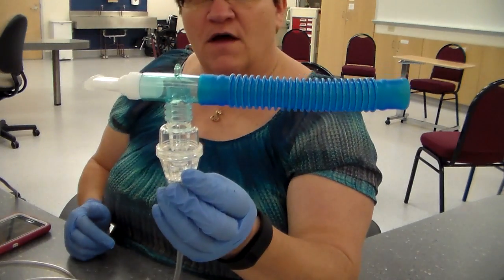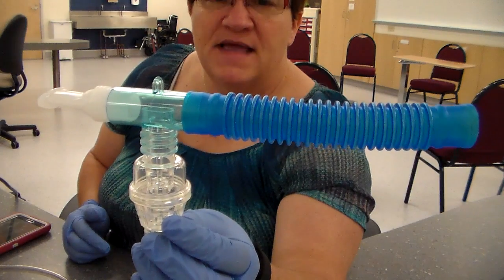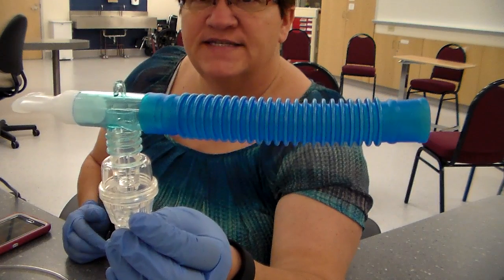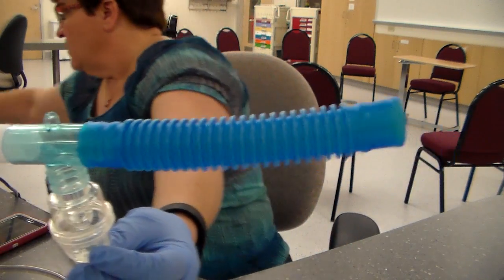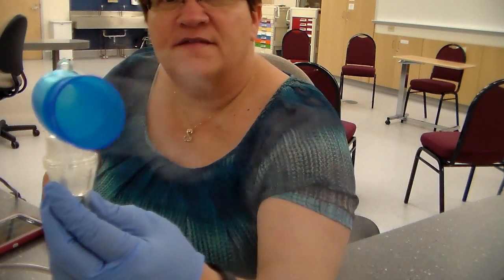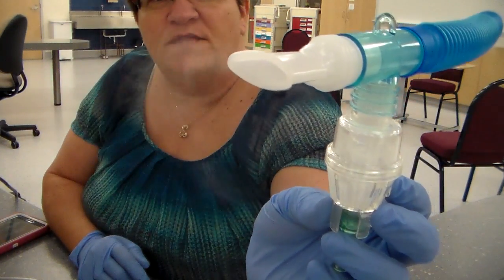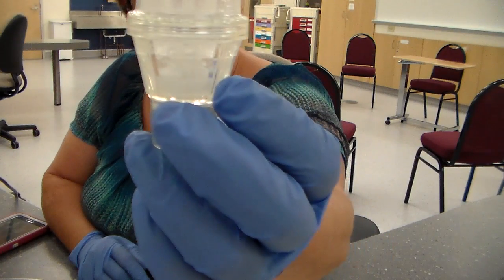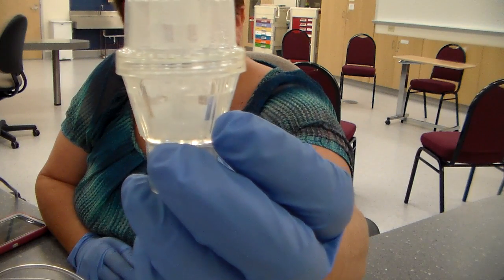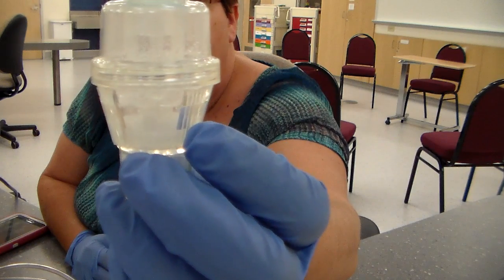Now I'm going to turn this on and hopefully you'll be able to see the mist, okay? I'm not going to leave the machine on for long because it's quite loud, but I want you to see the mist in it, okay? So hold on. Can you see that mist coming out of there? Okay? You see that mist? That's what they're going to be breathing in, okay? And look in the chamber. You see how the air is moving that medication around and it's aerosolizing it, okay? So they're going to be able to inhale it, okay?